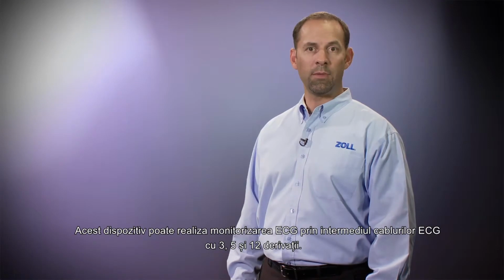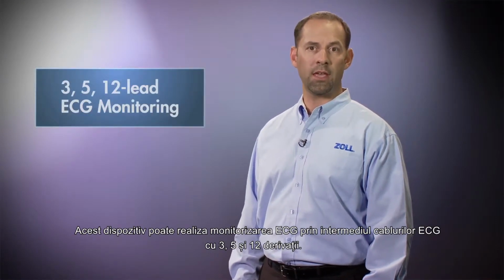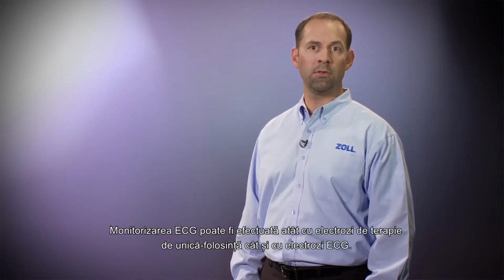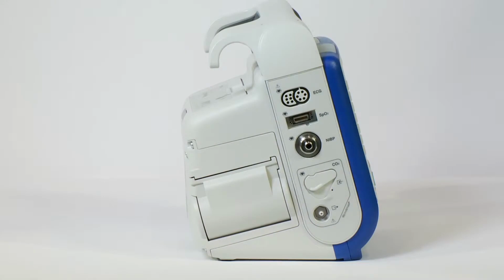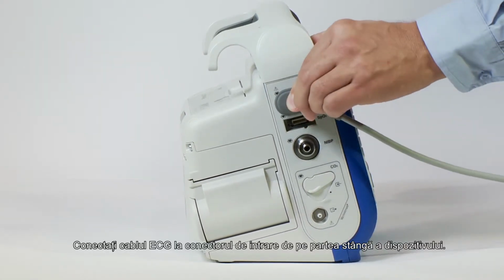This device can perform ECG monitoring through 3, 5, and 12-lead ECG patient cables. ECG monitoring can be done with both therapy electrodes and ECG electrodes. Connect the ECG cable to the input connector on the left side of the device.